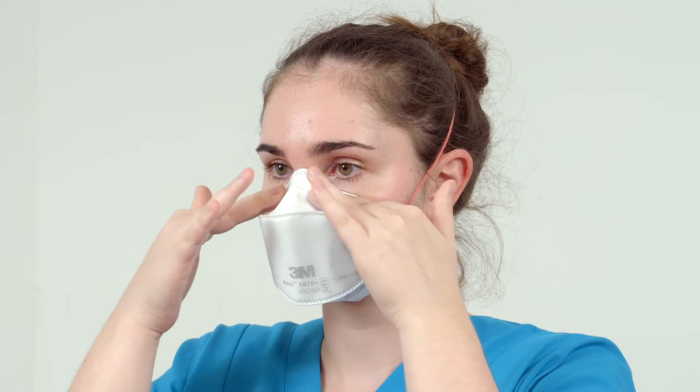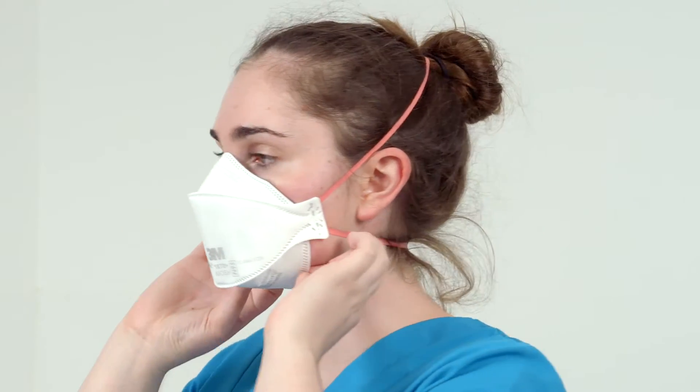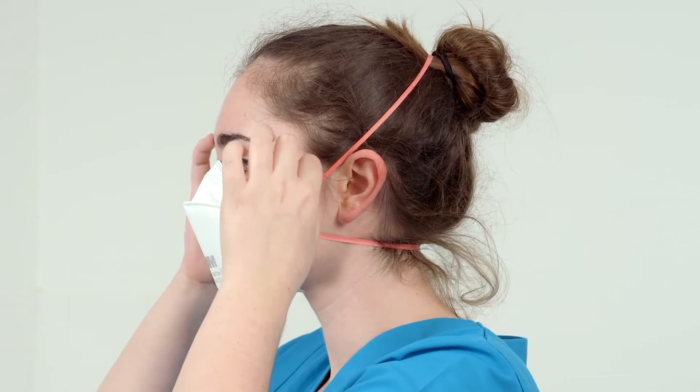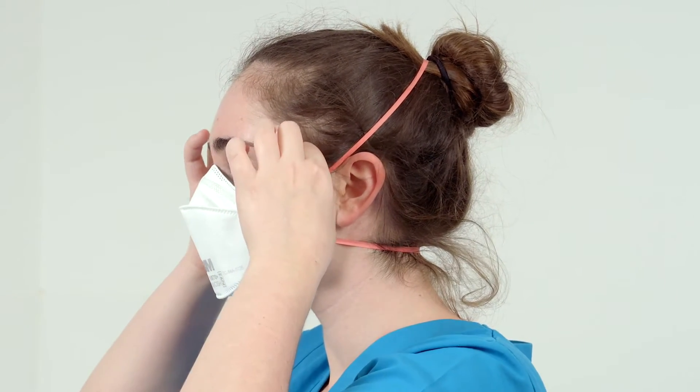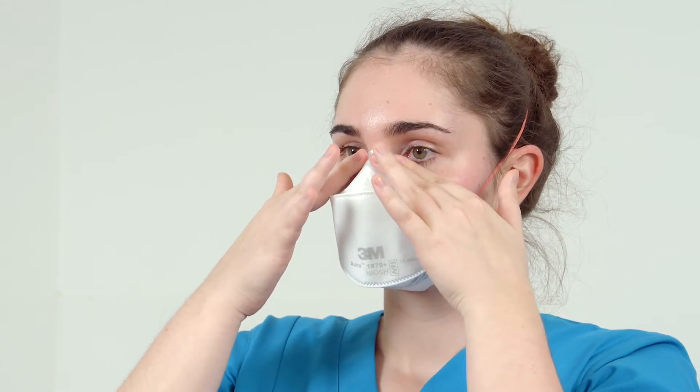If air escapes between your face and the respirator, you do not have a good facial seal and you should readjust the respirator and repeat the fit check process.